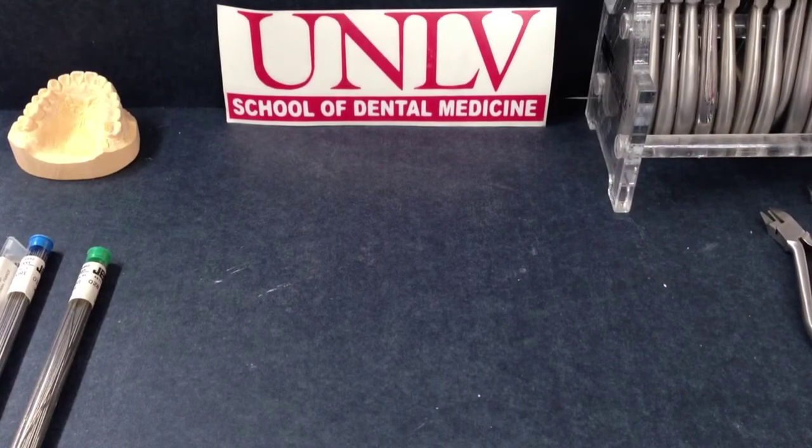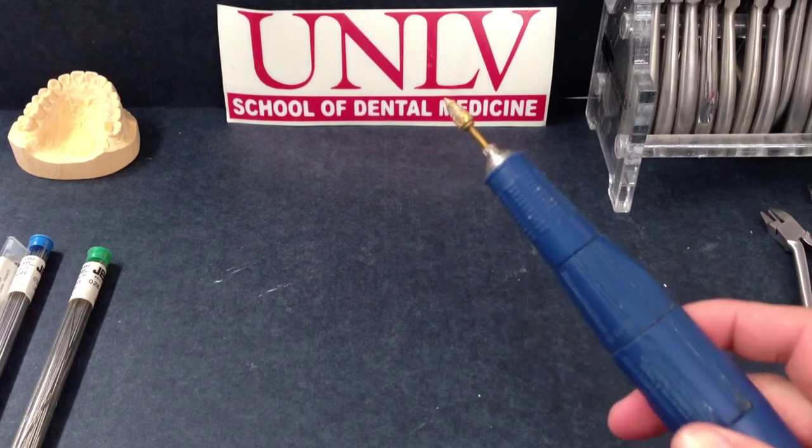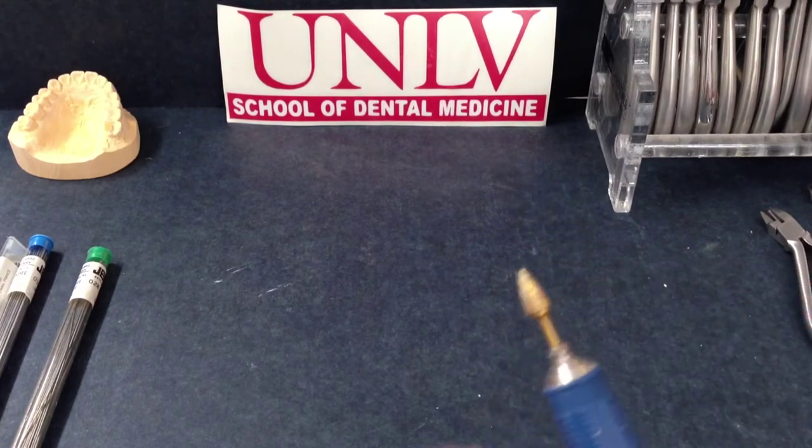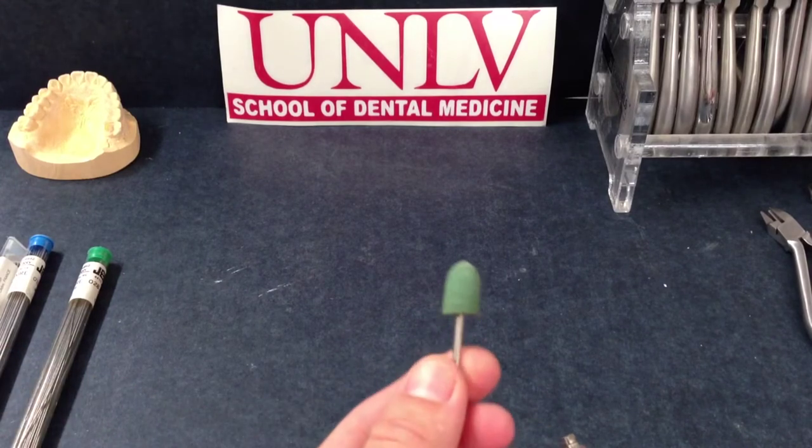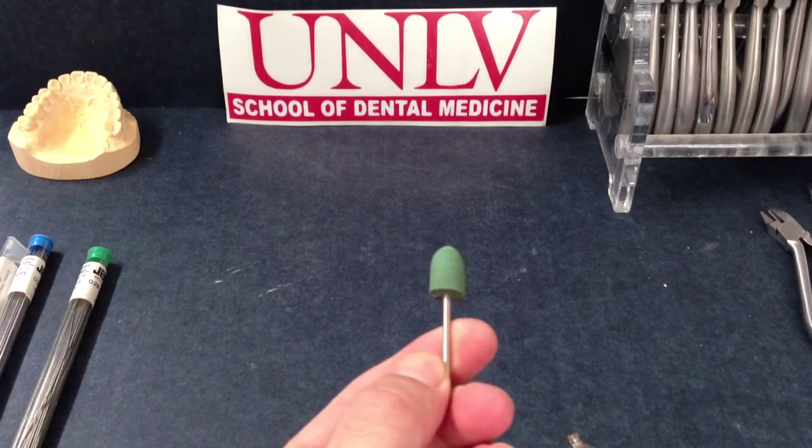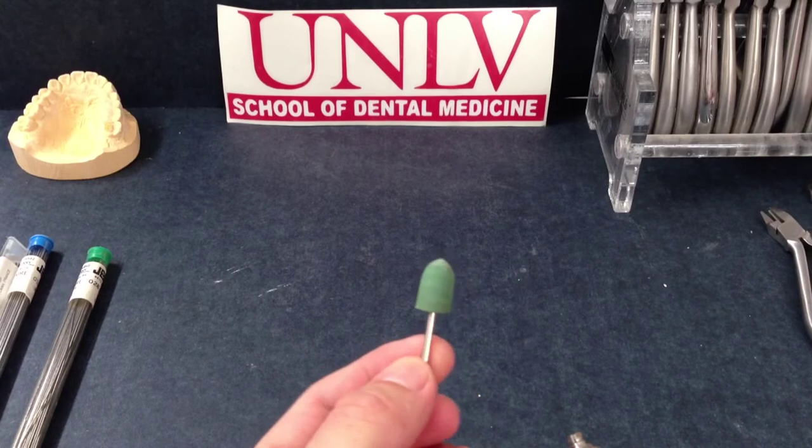You will need a standard straight handpiece, standard carbide burrs, and silicone tapered points if you can get them, which help to smooth out the acrylic.